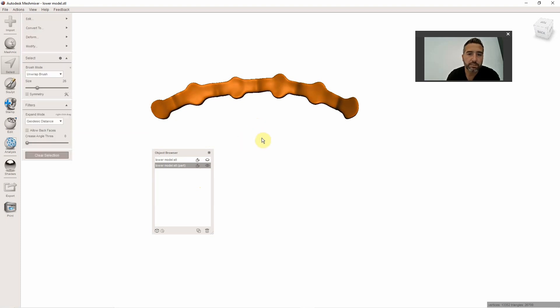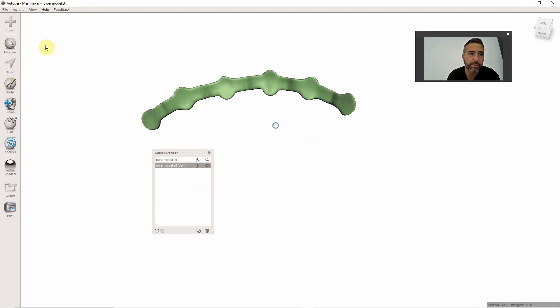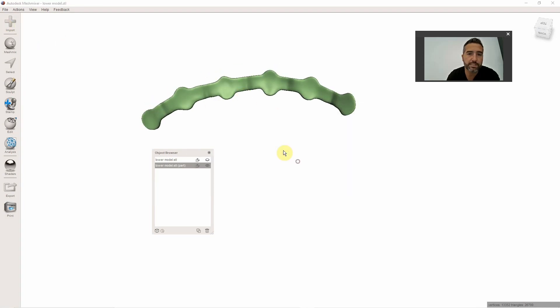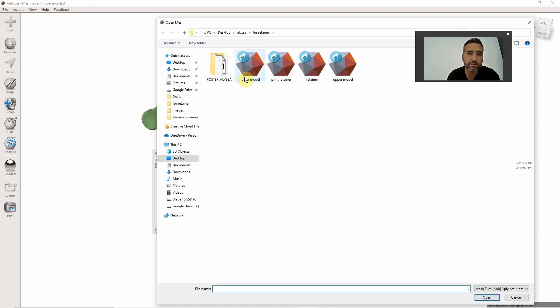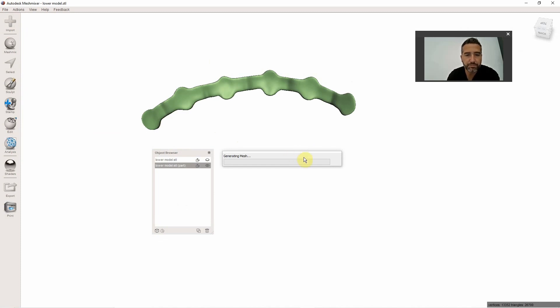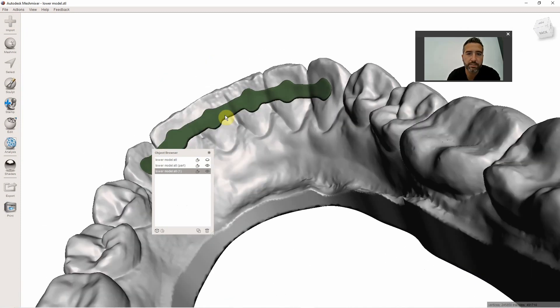Then I will right-click. Let me see. Clear selection. That is my final bar. Let me show you how that fits onto the model. So I'm loading that model back in. So that's what we get.